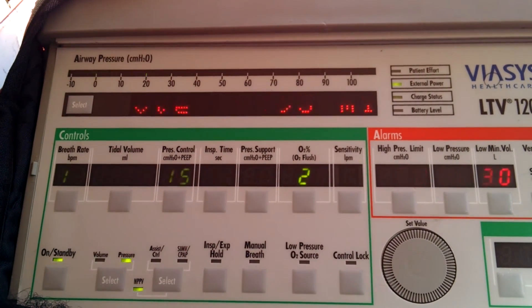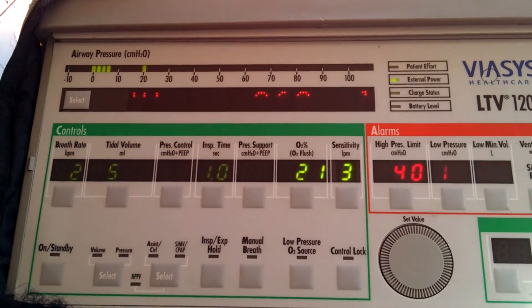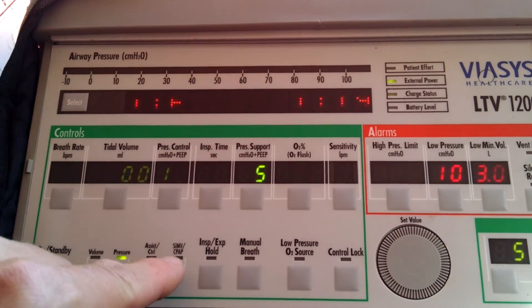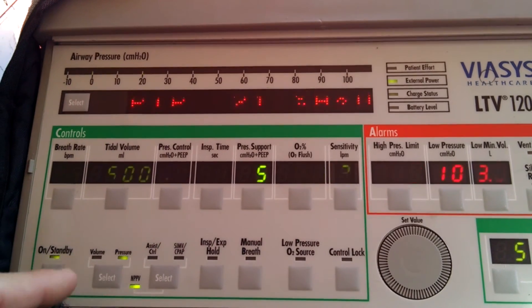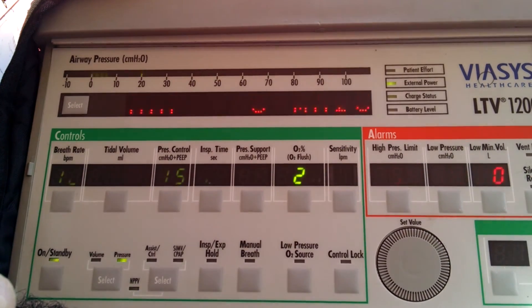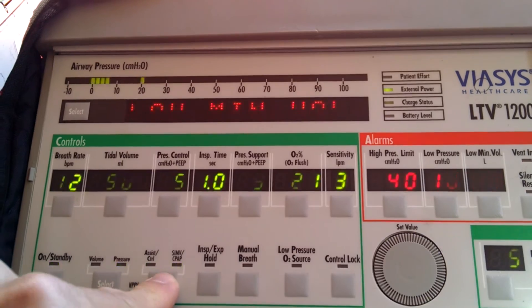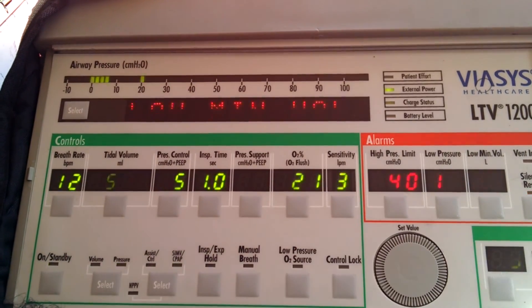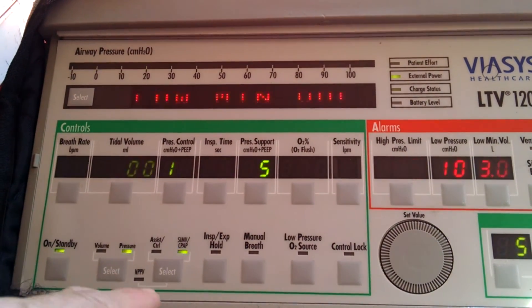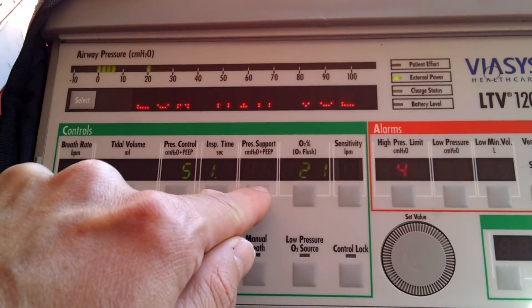Now that's one way to do this. I'm going to show you another way that we can do the same thing with the ventilator. We're going to use the SIMV CPAP mode. With this method, you do have to set the ventilator into pressure mode, which it already is in this case. We're going to hit select until SIMV CPAP lights up, accept that, and silence our alarm. We're essentially going to set the same thing we just did - a pressure support which will be the same as IPAP.